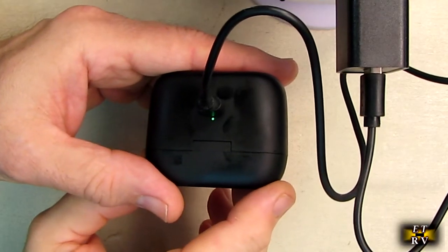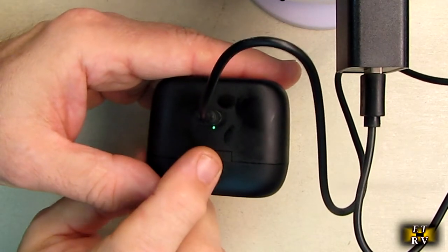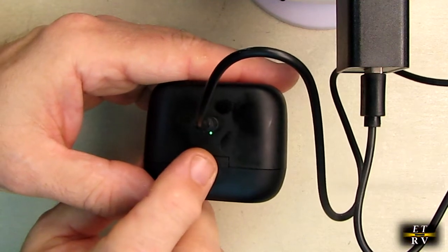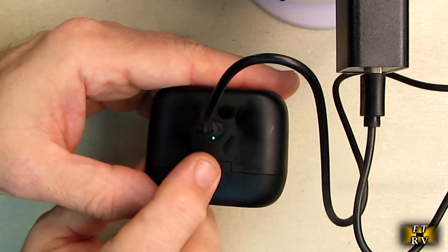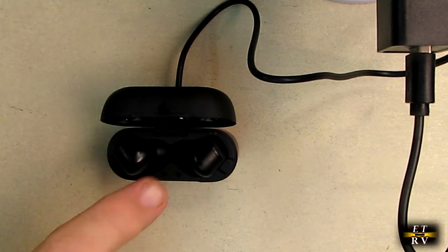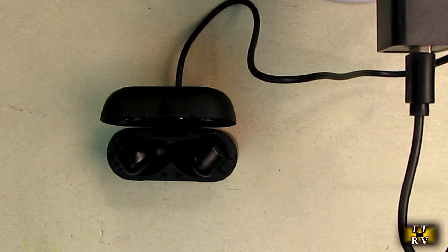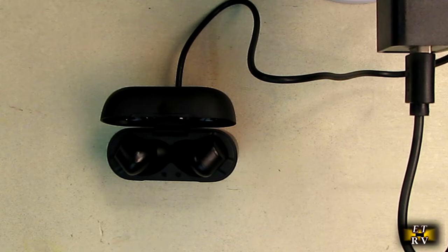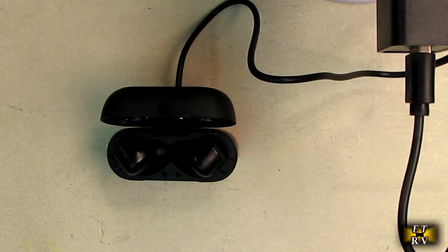After about an hour and a half, the earbuds are fully charged. You can see the LED went to green. While that's charging, let's go over some specs. If you're experiencing mild to moderate hearing problems and need sounds amplified to hear comfortably or better, then the amplifier could be the ideal solution.